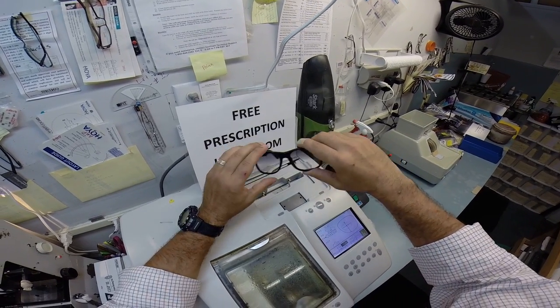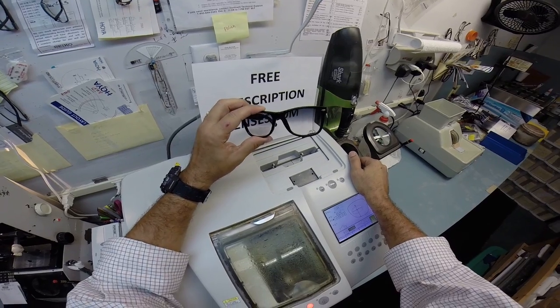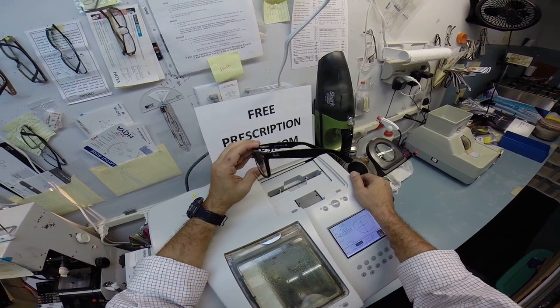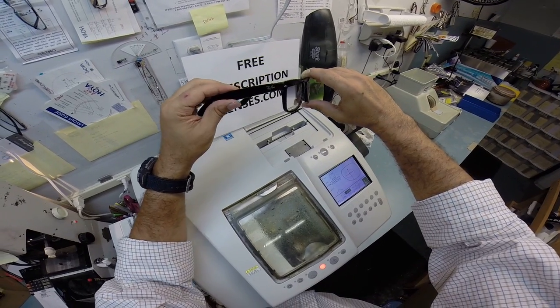Dave, I hope you enjoyed watching as I made your bifocals with a gradient gray tinted lens and everyone else has got the chance to see how I bring that love and feeling back to glasses. Thank you.